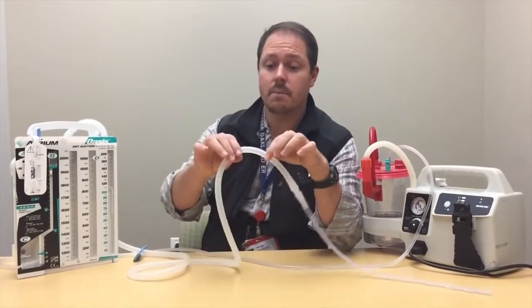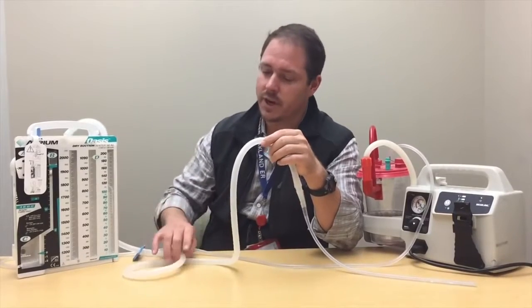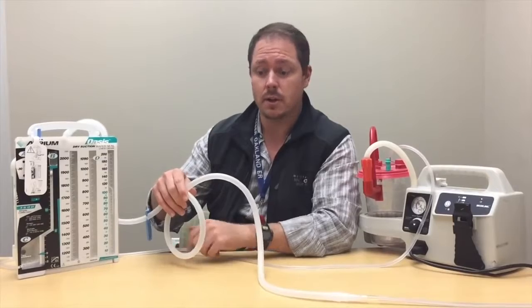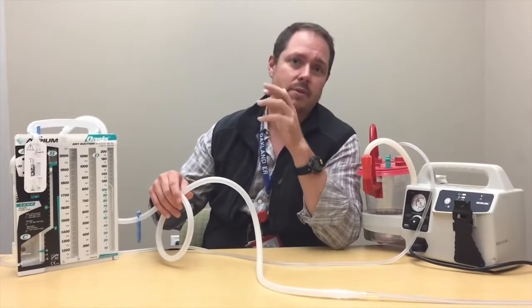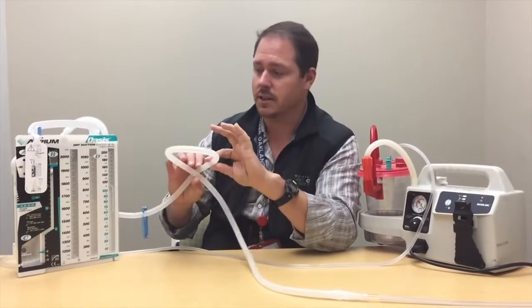Another great feature of this rubberized, siliconized tubing is that you can sample through it. Inevitably you'll get blood draining from the pleural space resting in dependent loops here. You can go ahead and put a needle in — it's self-sealing, which is really cool. Put a needle in, take your sample, run it to the lab, do culture and sensitivity, whatever you need, and keep on trucking.